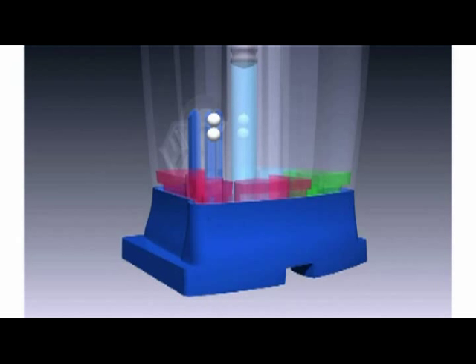Once the sonication is complete, the piston pushes the liberated genetic material into the chamber that contains the first two reaction beads. These beads dissolve into solution with the genetic material.